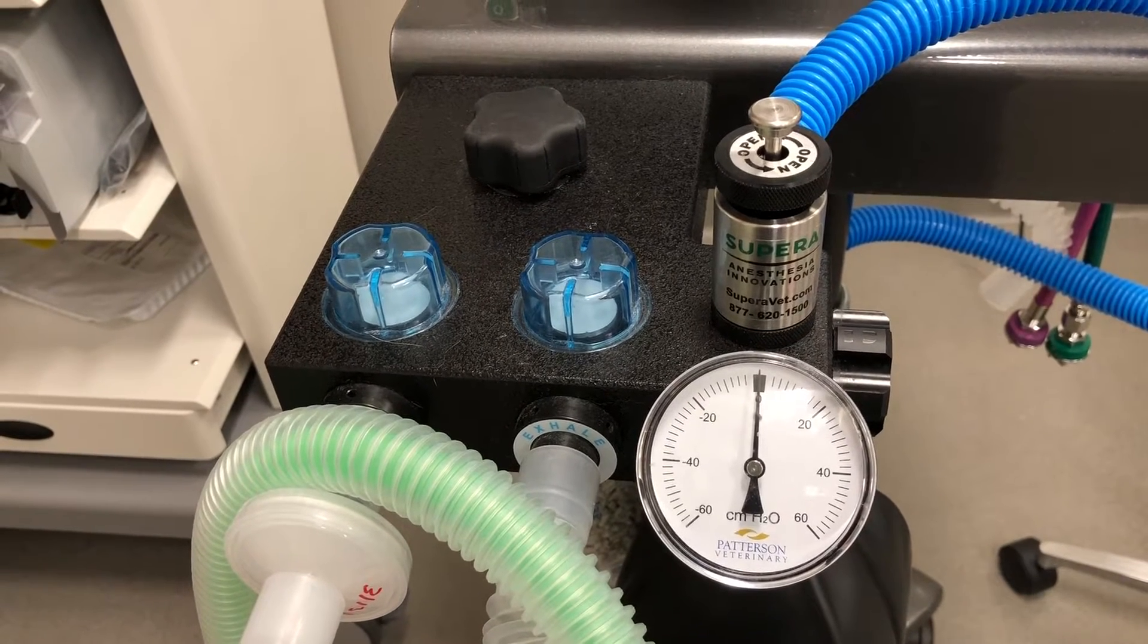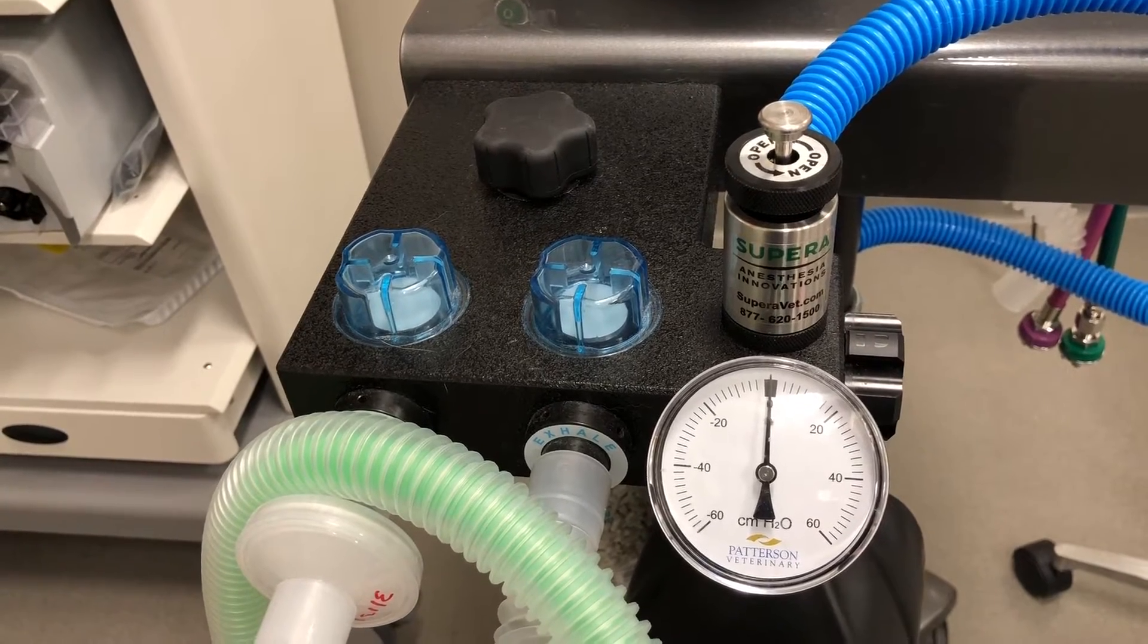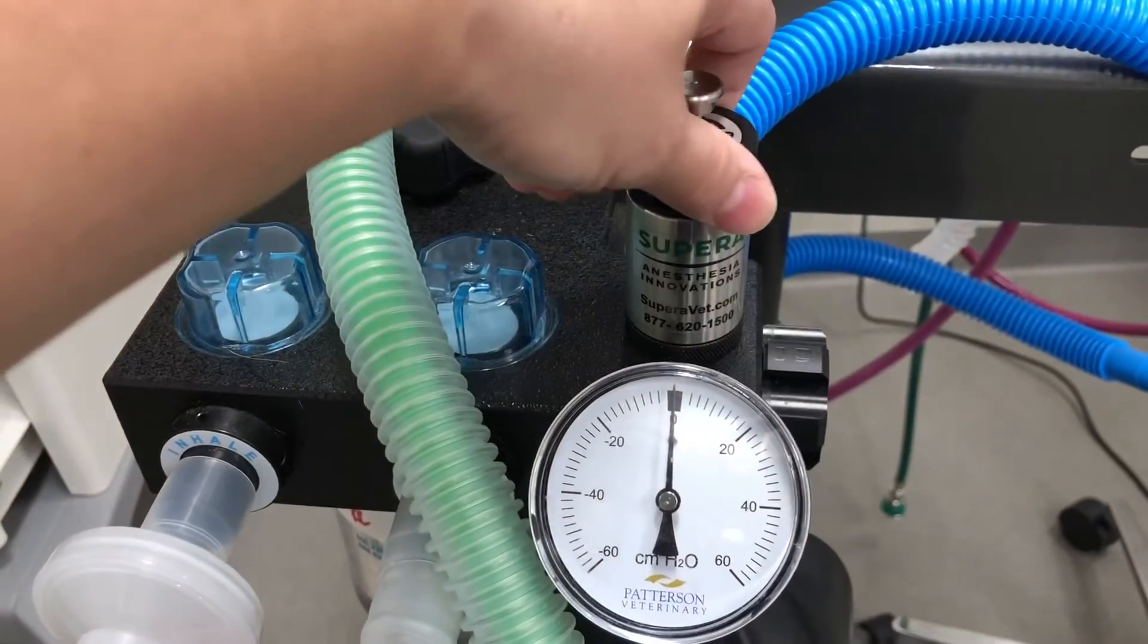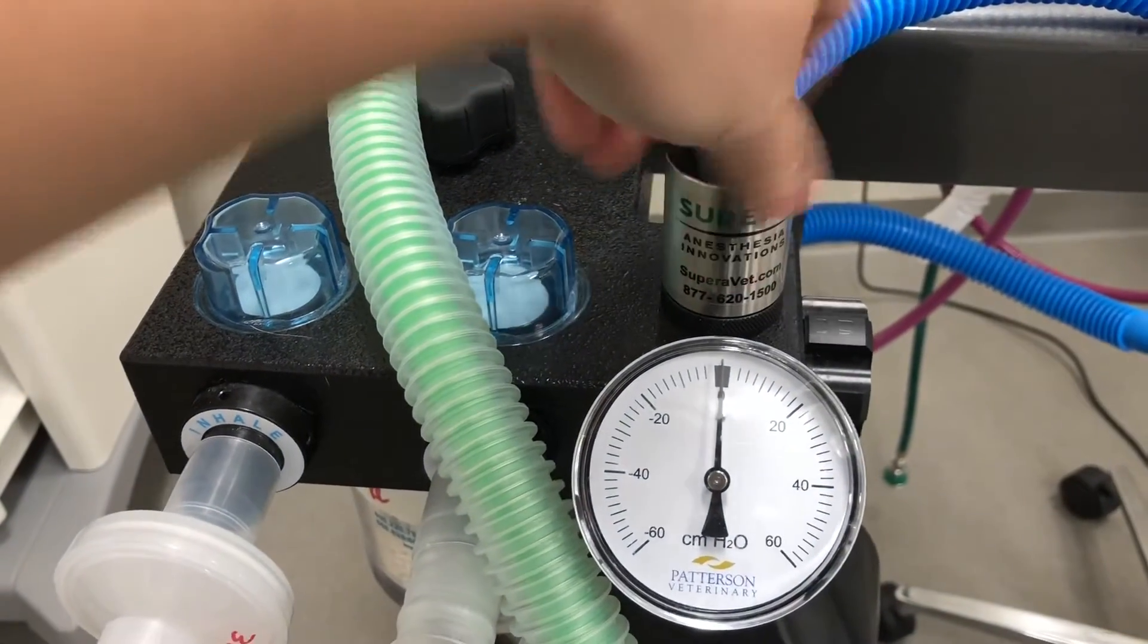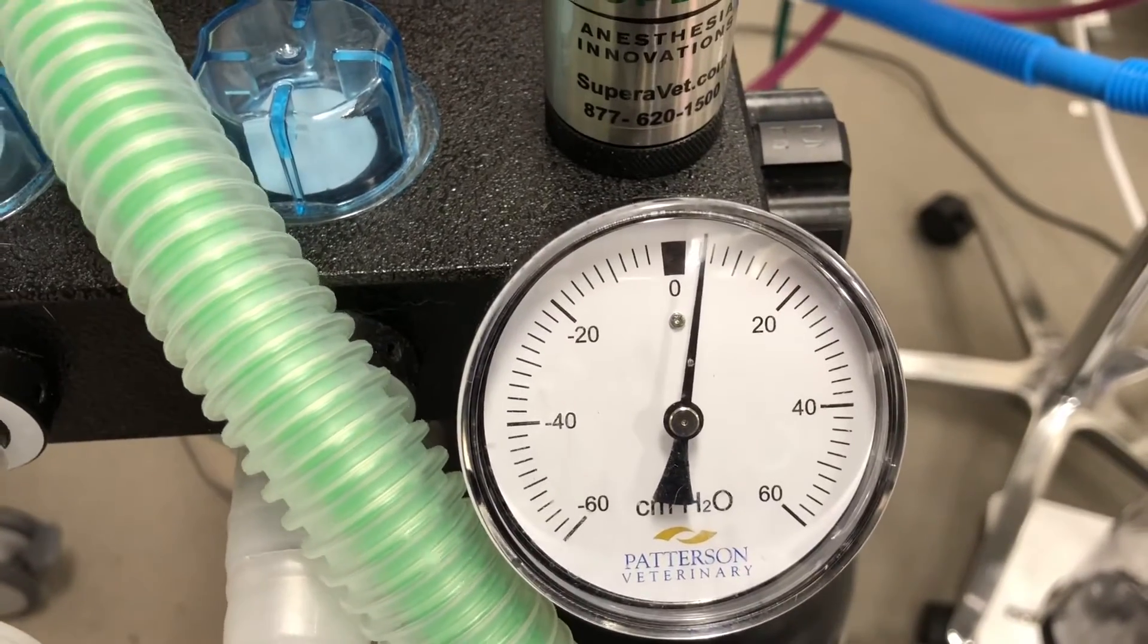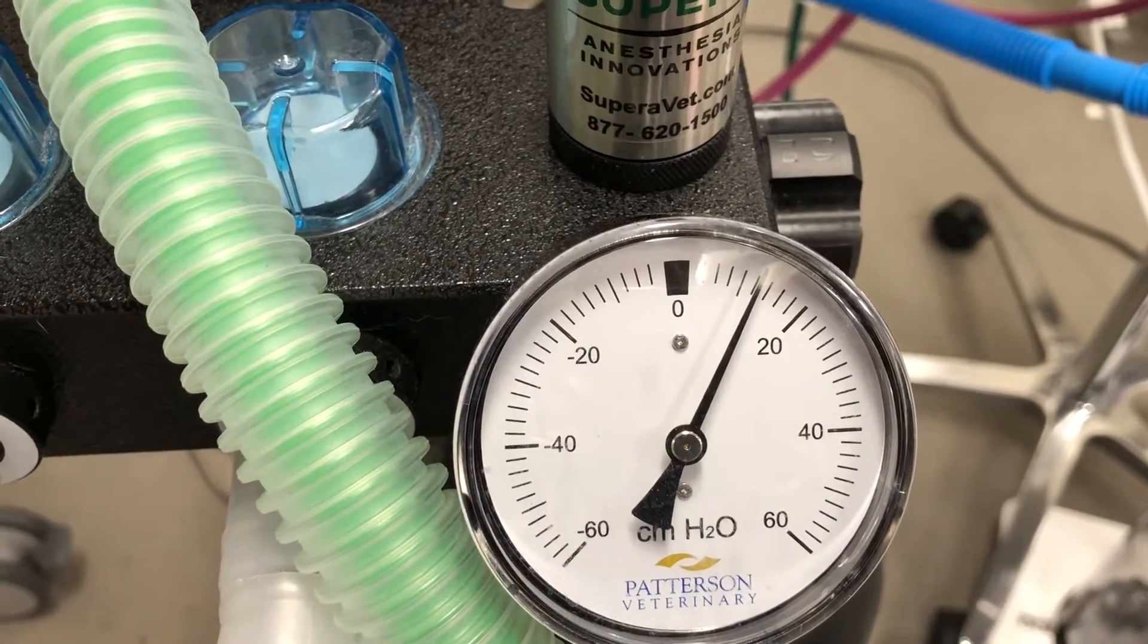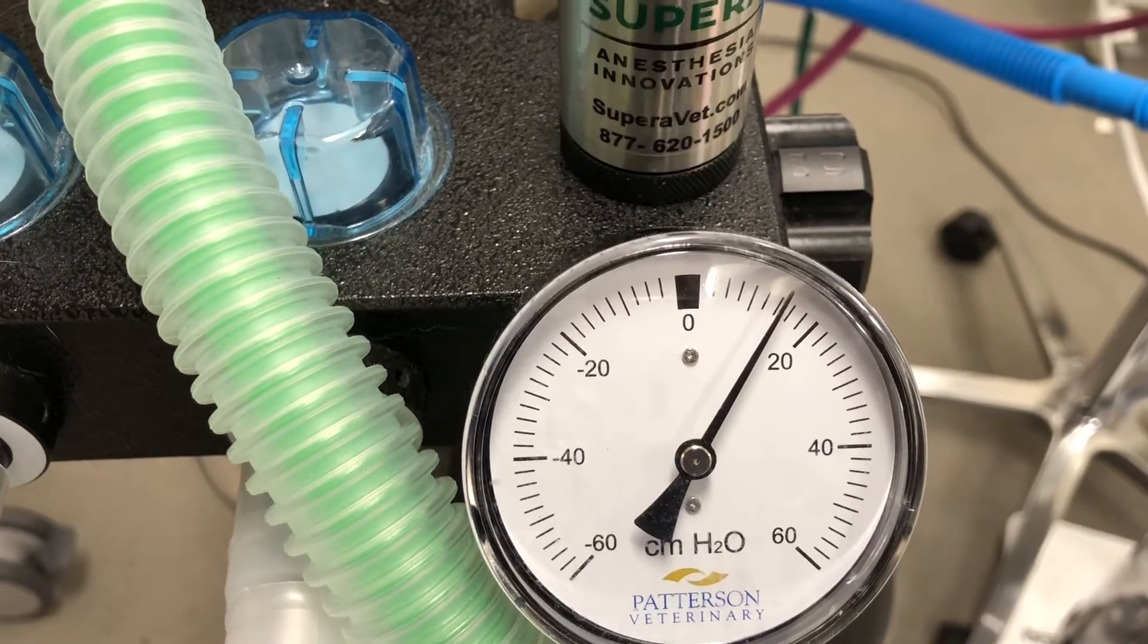This should prevent most barotrauma and closed pop-off issues with our patients. To show this, I'm going to close off the pop-off valve and hit the oxygen flush and you'll notice that the pressure will not go over 20. The valve will just exhaust any pressure above that.